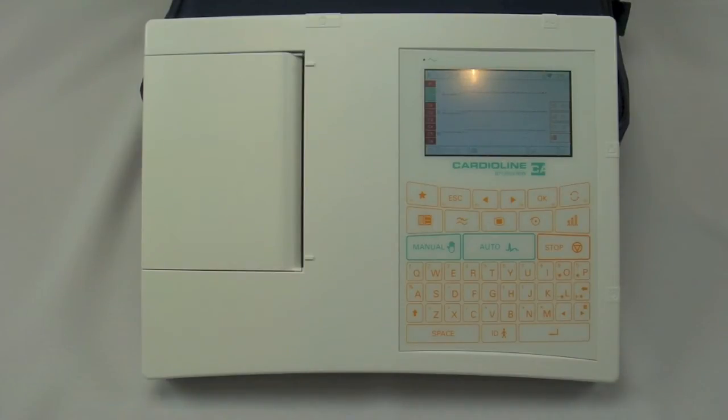You will notice this particular unit, the AR1200, does include a full QWERTY keyboard. The model below it, the AR600, does not include this, so if the keyboard is important to you, you need to go with a 1200 or 2100 unit.